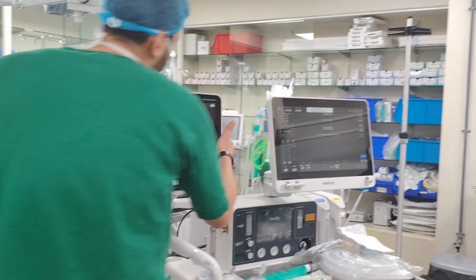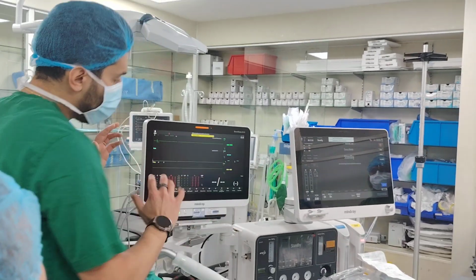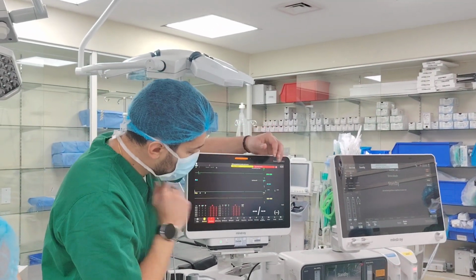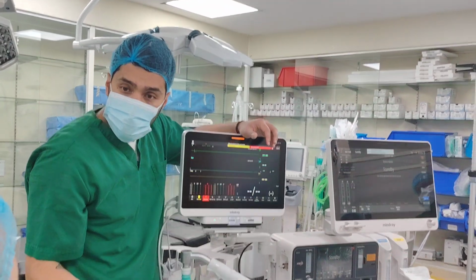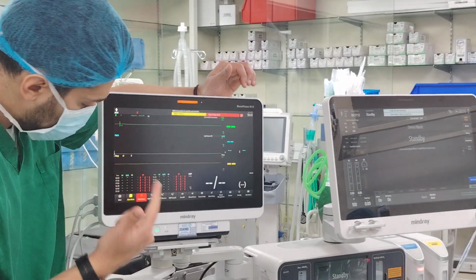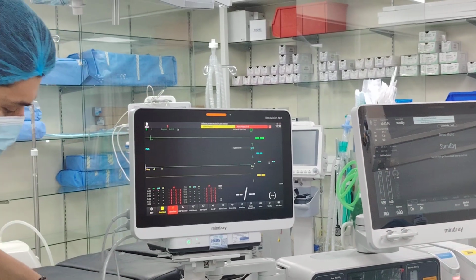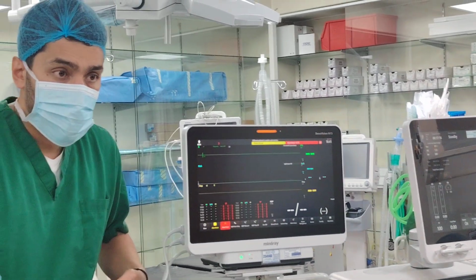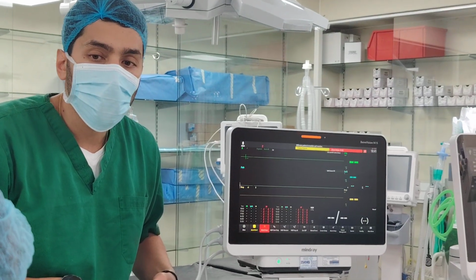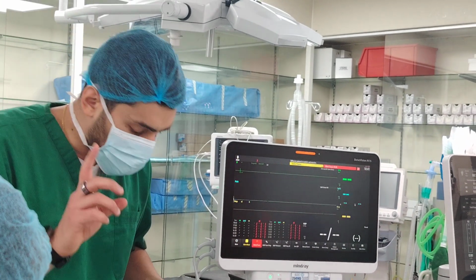Monitor, what I plan today is I can change any settings that you want, meaning the colors. I believe maybe non-invasive blood pressure, you like it red, correct? Or you're used to white, red. I will make it red for you, that's number one. Number two is, what I've seen is you have this cable. Is it true that in all the rooms it's a red cable? No, it's gray. It's gray, so very good.